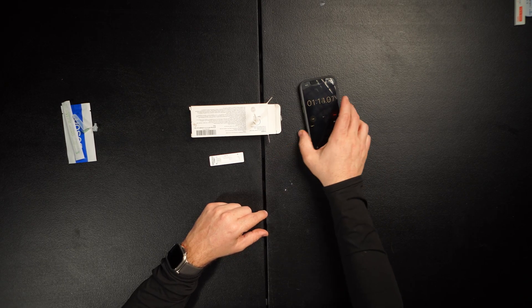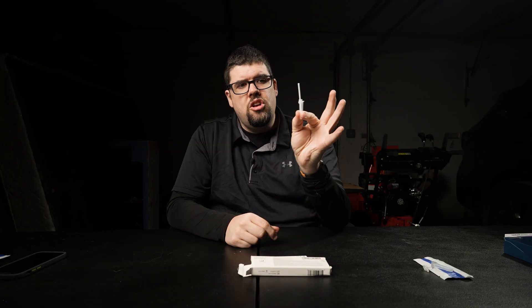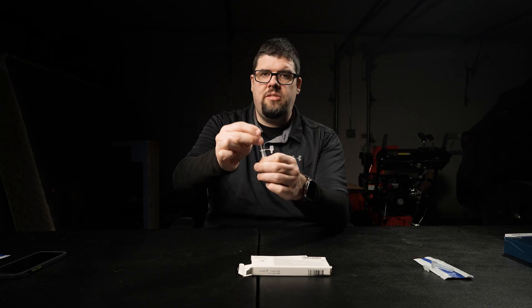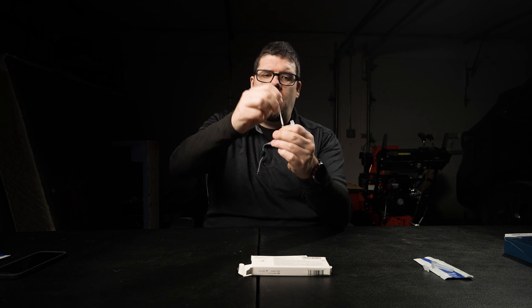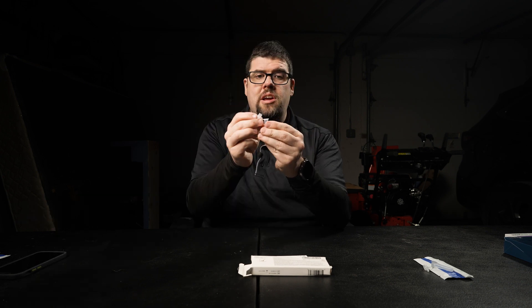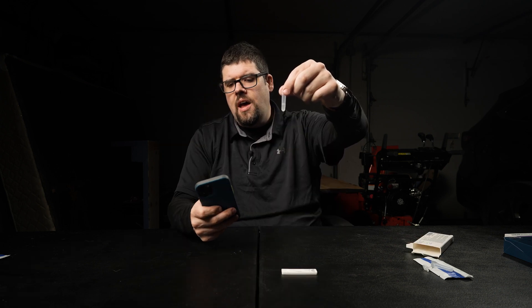We are at one minute and 10 seconds, so a little over. I'm going to take it out — looking at the solution, it's a little cloudy. You're going to take your fingers and squeeze the bottom, spin it again, then go up and down. Work those fingers. Move them up to the top and wring out as much solution as possible. We're going to discard the swab, take our lid, put it on top and push it down. I'm going to put three drops in the S area.